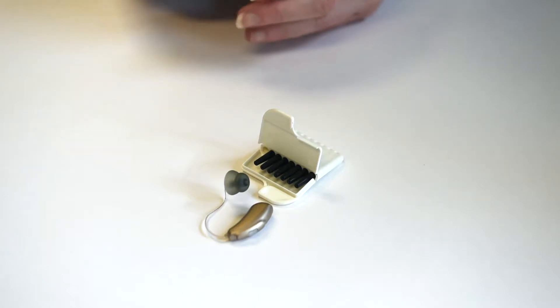Today I'm going to show you how to change the wax filter on the wire style of hearing aid from Widex, Phonak, Unitron, or ReSound.